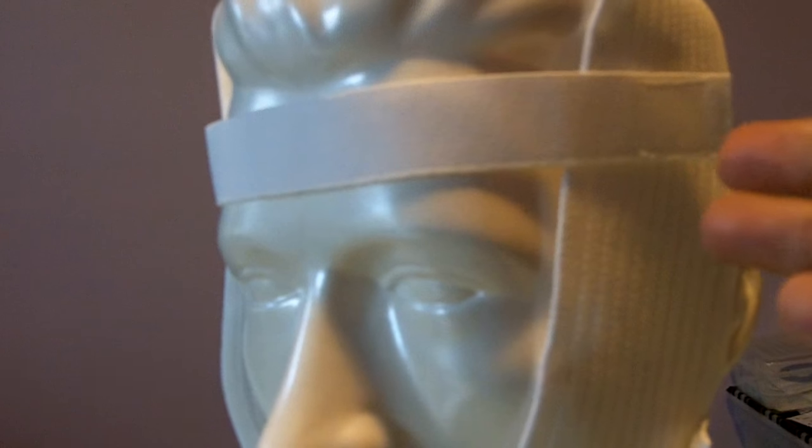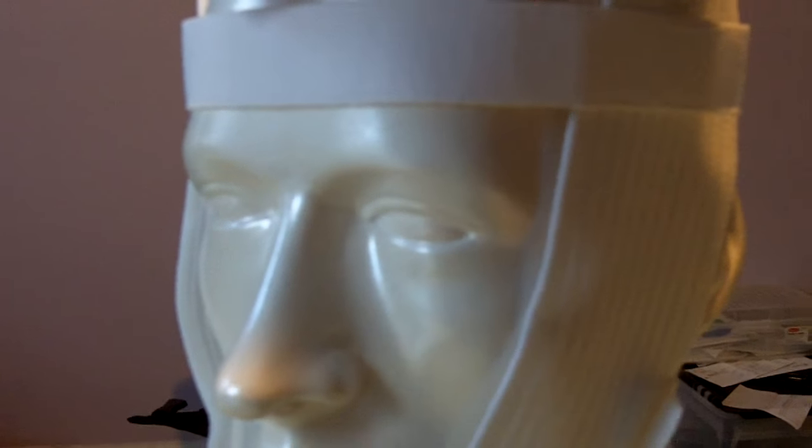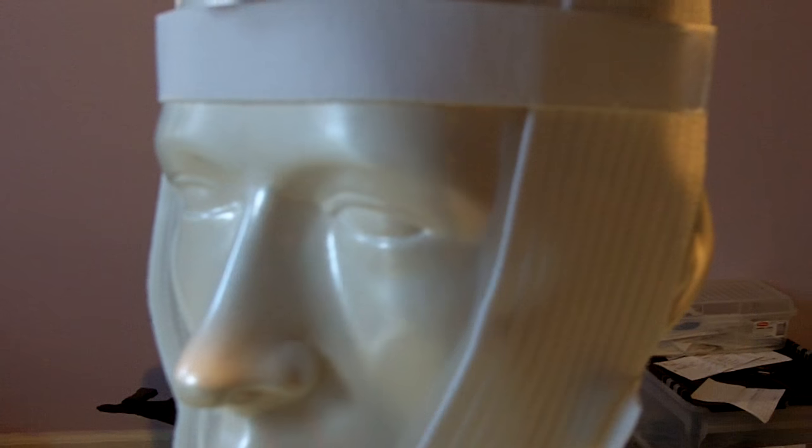You don't have to use it, but it helps stabilize this CPAP chin strap, ResPironics Deluxe Chin Strap even better.